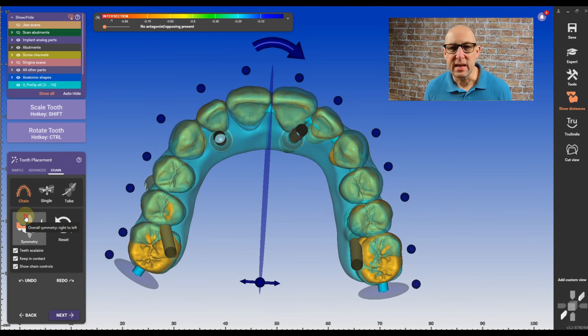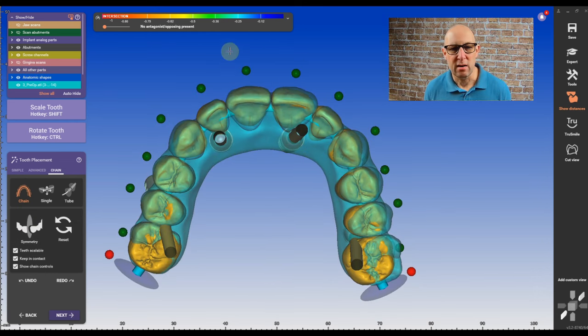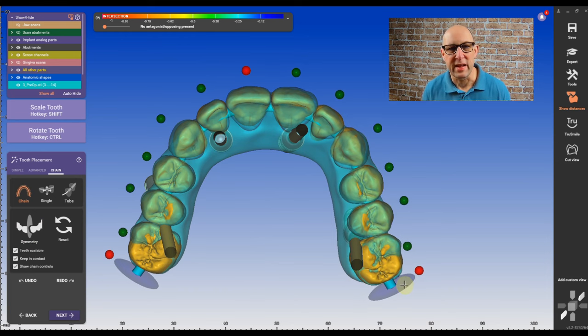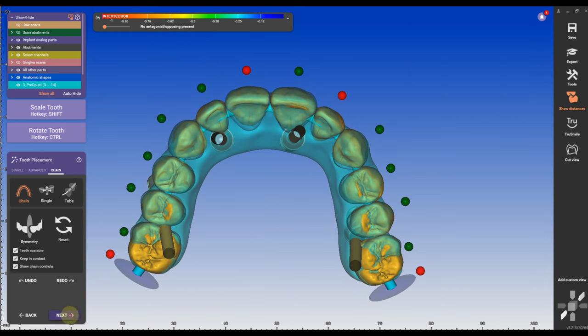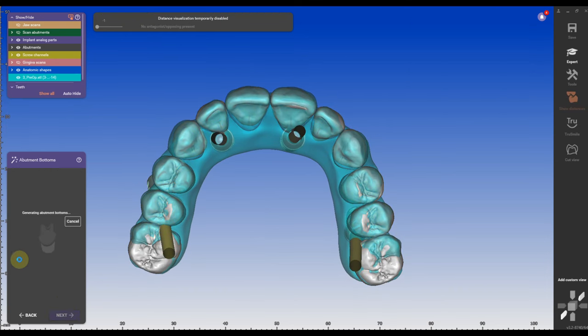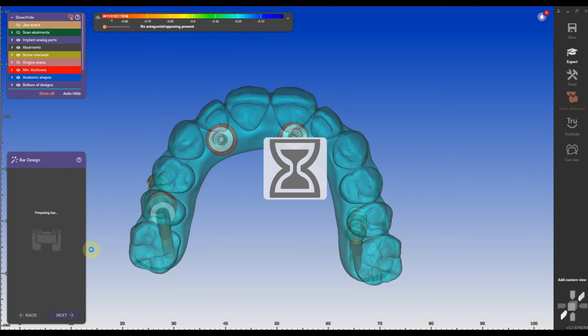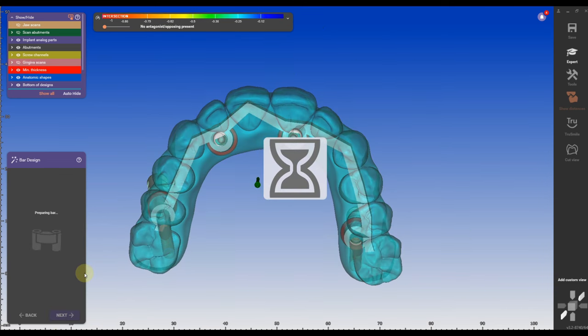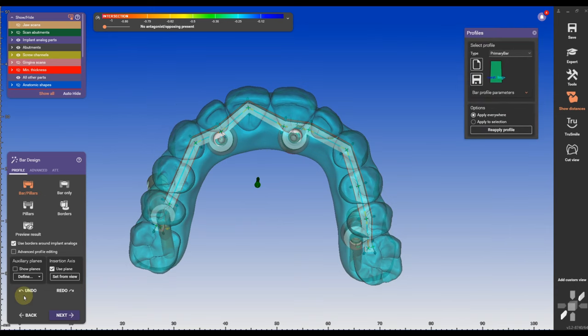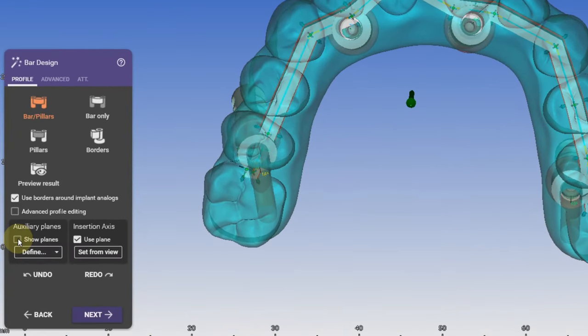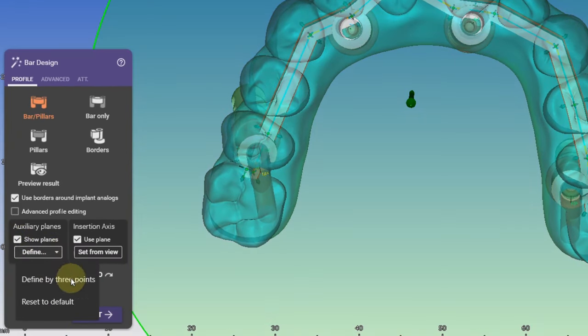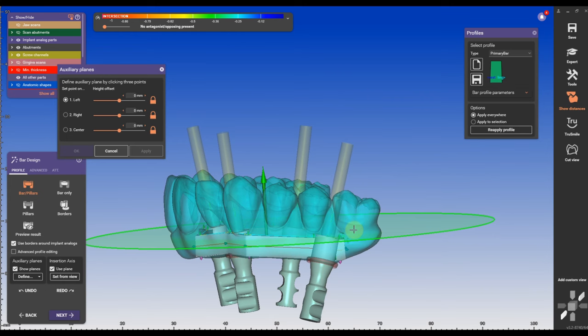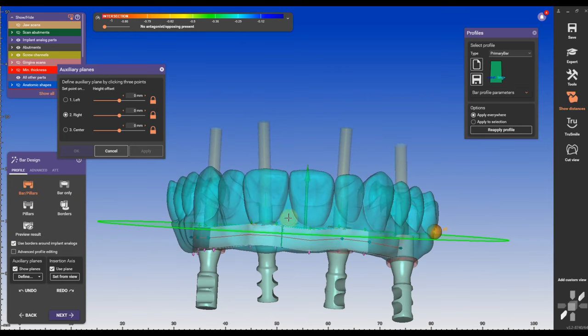Don't go crazy here, don't spend a lot of time here. You don't need this anymore because we already have our pre-op scan. I'm going to go forward with a bar design and in the bar design I don't want to go really detailed on the bar design. There are many YouTube videos out there how to design bars, maybe I'm going to do one myself one day.